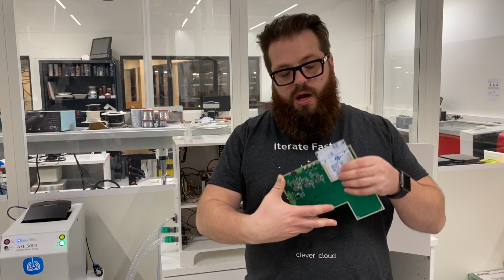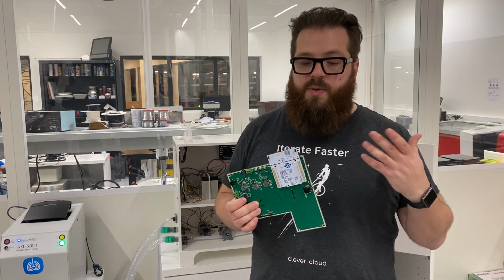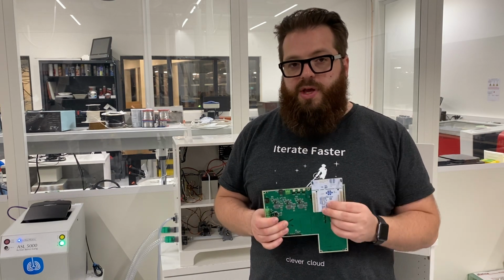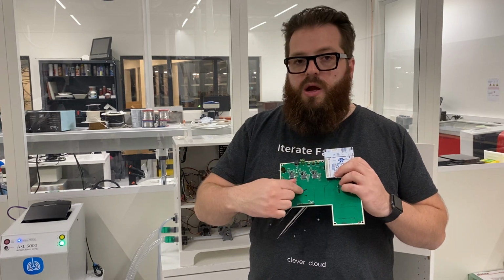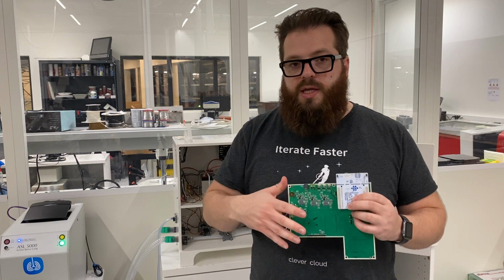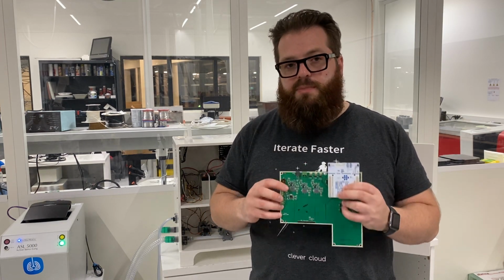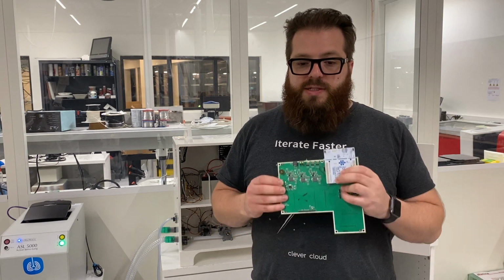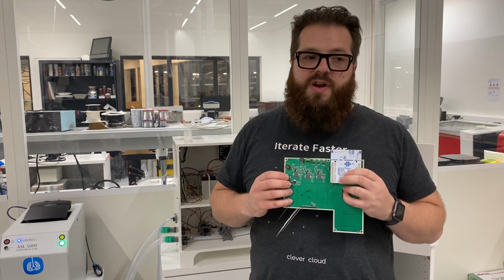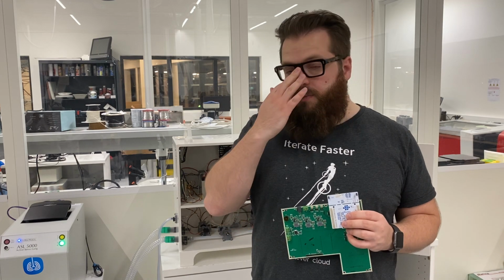And we put there something called the Nucleo from ST Microelectronics from France, and the chip inside this will be in a future version directly implemented there. So it will reduce the cost and simplify everything to make sure that this will be simpler to make happen for everyone. It's very stable, and you can have confidence in this microchip.